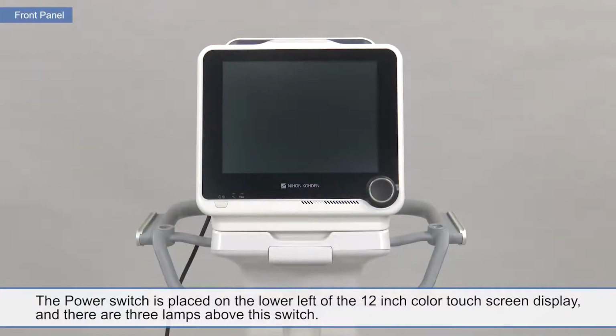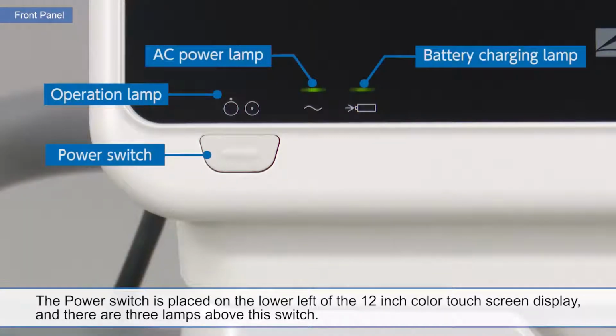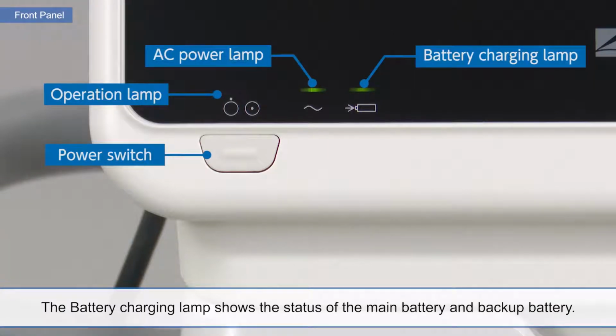The power switch is placed on the lower left of the 12-inch color touchscreen display, and there are 3 lamps above this switch. The operation lamp lights when the ventilator is operated. The AC power lamp lights when the AC power is supplied to the ventilator. The battery charging lamp shows the status of the main battery and backup battery.